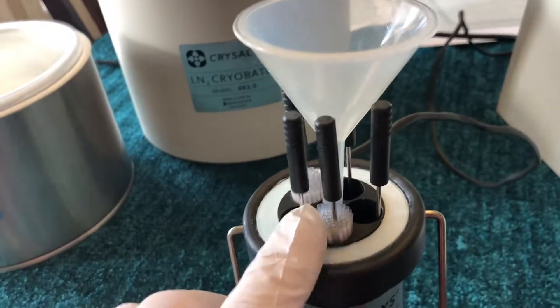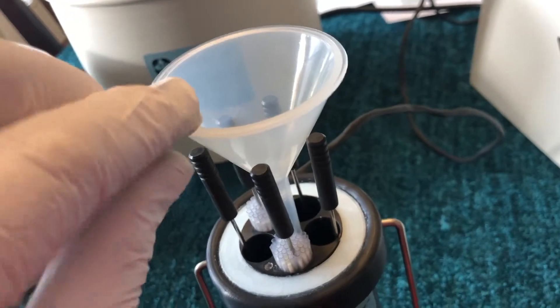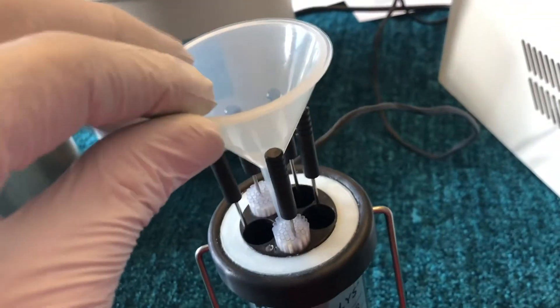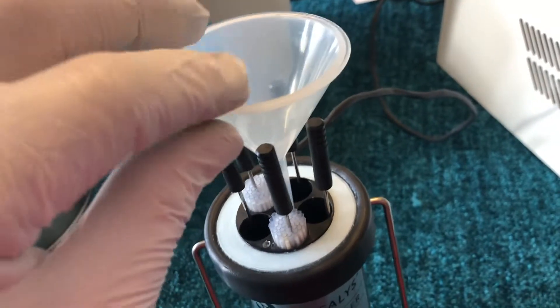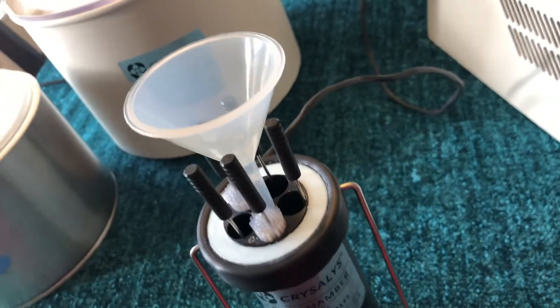When all five wells are full of quarter ml straws, this micro funnel made of polypropylene — impervious to liquid nitrogen — will sit level. For the purposes of this video it is not, because we only have two wells filled. We only have enough straws to fill up two of the wells, that's 72 straws, so it's not sitting perfectly level — just FYI.